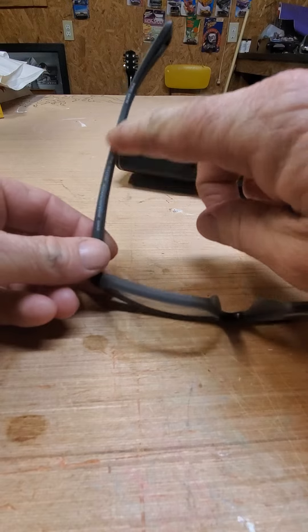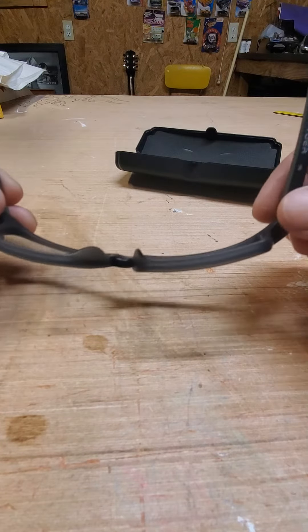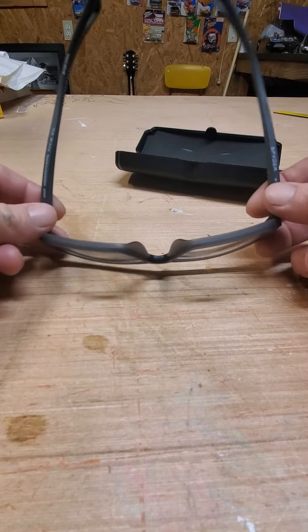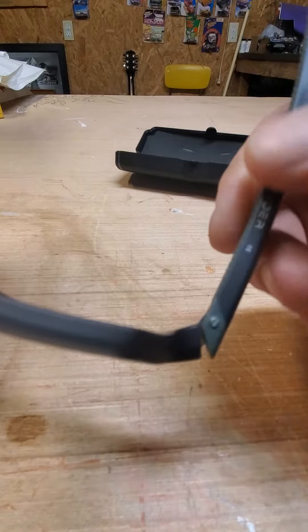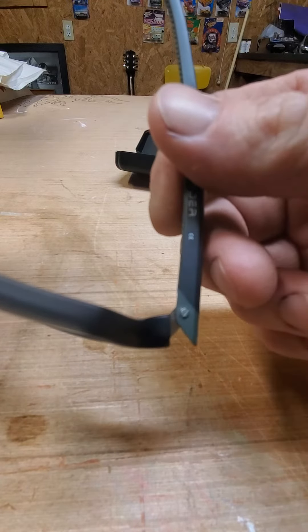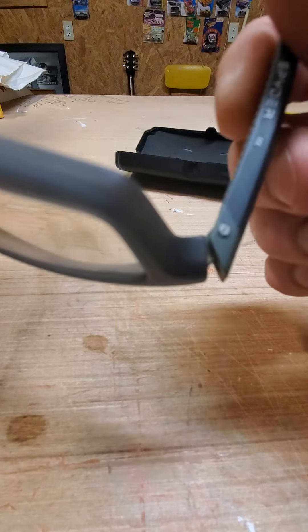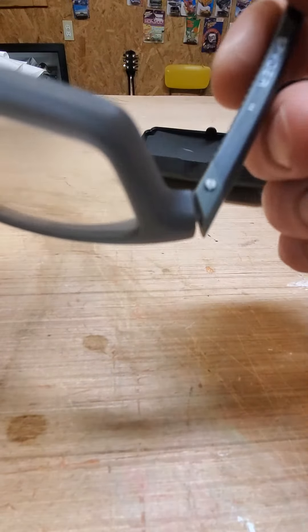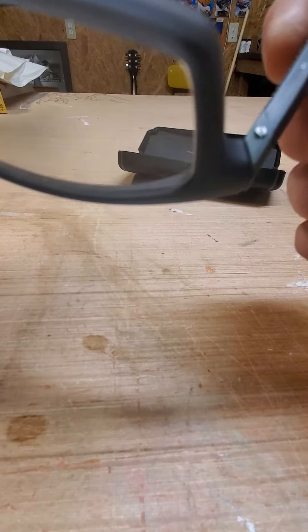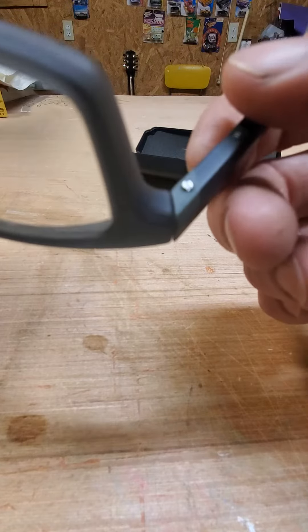Kind of wide around here, not what I'm used to. I'm used to the ones that kind of hug the face a little more. The only thing I've seen I don't really like about them — you see that little screw right there? When you move the arm in and out, that screw rotates. But it hasn't backed out yet, so maybe we're okay with that.